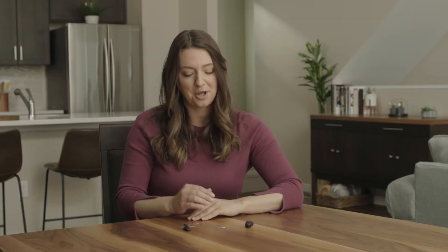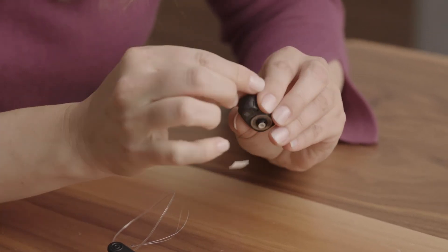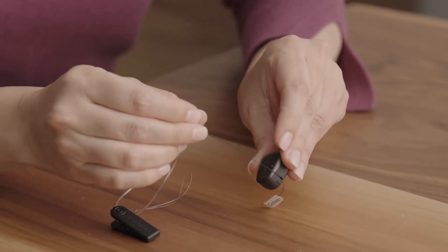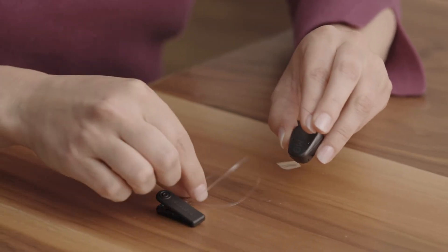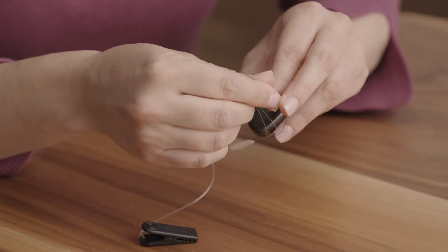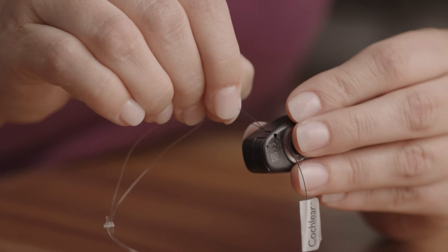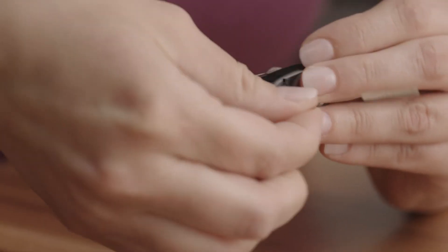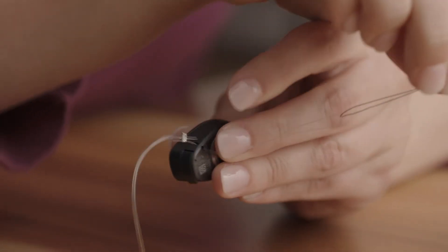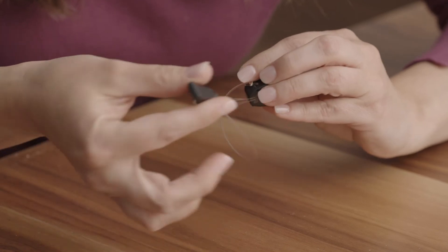Your safety line can be found in your kit. To attach it, pull out the elastic thread applicator and thread it through the attachment hole. Then take the loop of the safety line and place it around the safety line attachment thread. Thread the safety line attachment back through the attachment hole and pull until the loop of the safety line is through, then pull the clamp through the loop and tighten to secure your safety line.